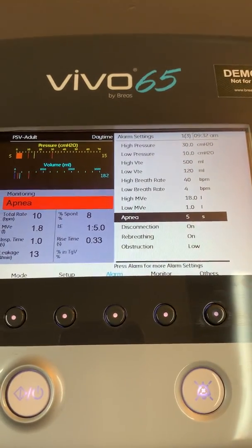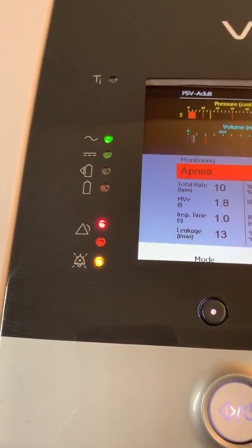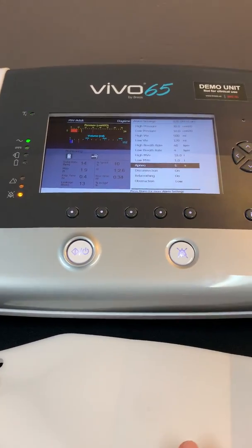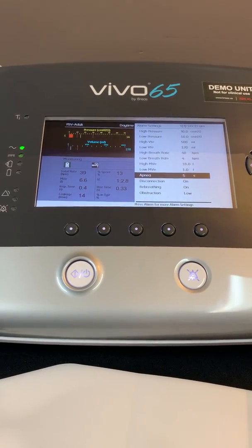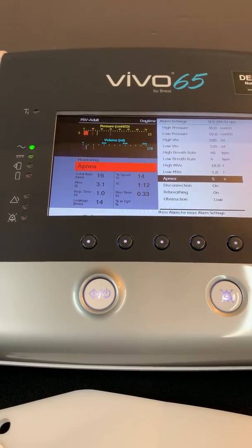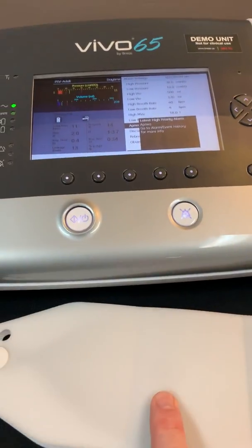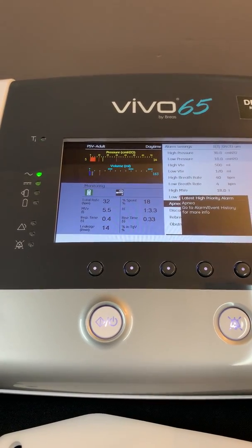If an alarm occurs on the 65, you're going to get a message in the window that states what type of alarm it is. I've got a red blinking light to show that it is a high priority alarm, and this is my alarm silence. If I want to silence the alarm, I simply press that button. I now have an indicator showing that my alarm is silenced, and that silence occurs for 60 seconds. I'm going to press down on my test lung to have the ventilator recognize spontaneous effort, and you'll notice that the apnea alarm goes away. If I let go and stop pressing on the test lung, in five seconds we're going to get another apnea alarm activation. Apnea on this device is associated with spontaneous breathing. The alarm will reset itself if you get some spontaneous effort, and then will go off again if the patient goes apneic.